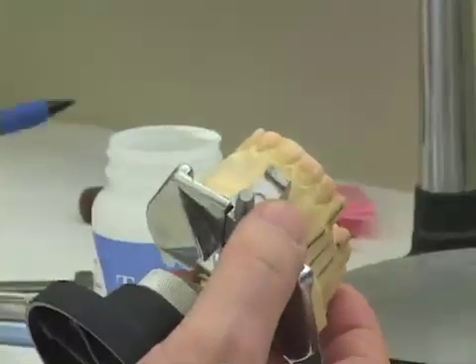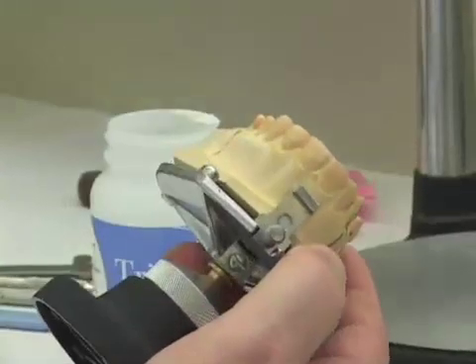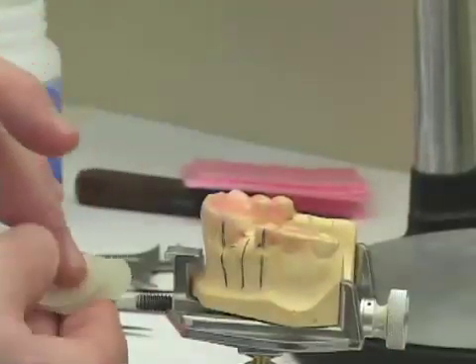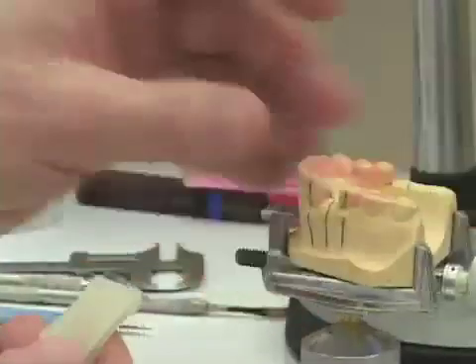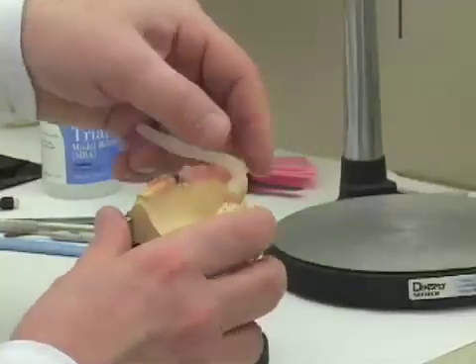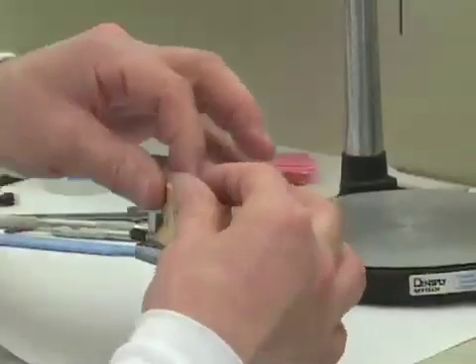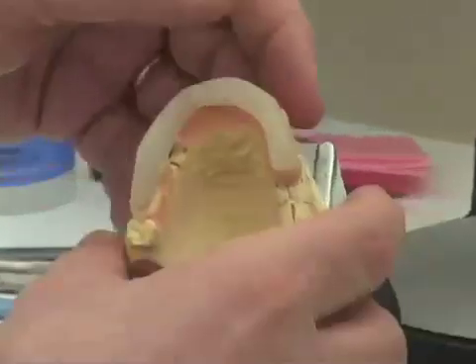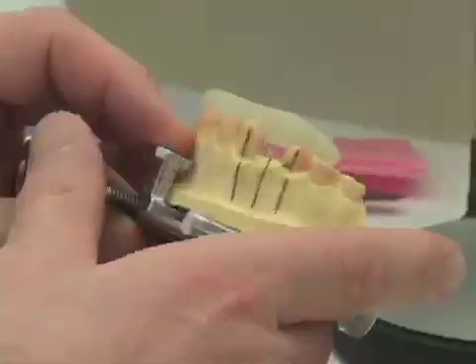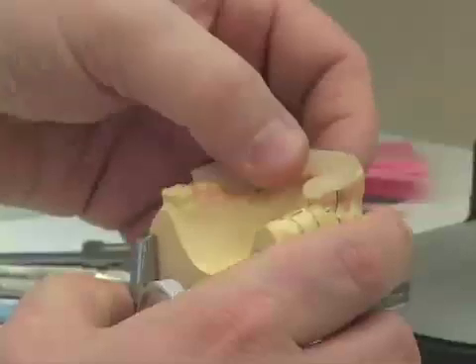As a precaution, I flow a small amount of wax, a very thin skin, on the buccal and labial surfaces of the cast as well. I fold the cut piece of triad in half and roll it in my hands to make a long cylinder or worm, which I lay on the occlusal surfaces of the teeth. I can squeeze it shorter, and then carefully press vertically down on the triad, adapting it on the lingual aspect of the model.